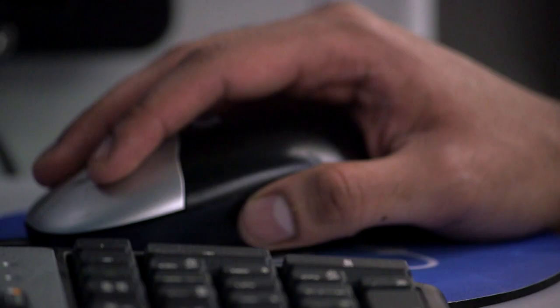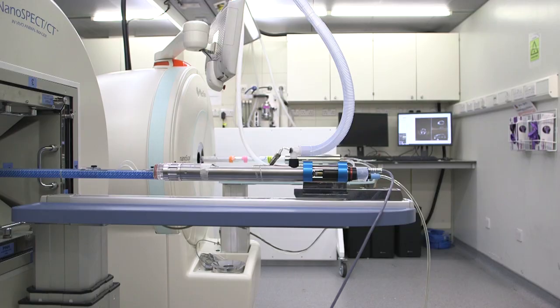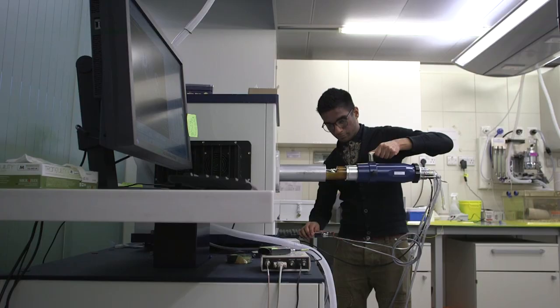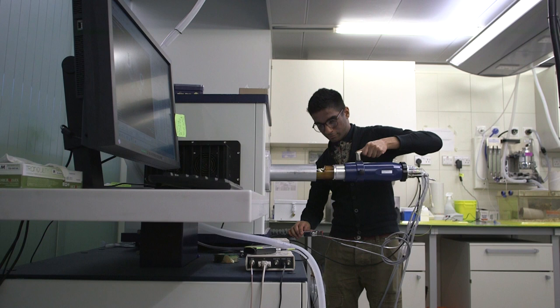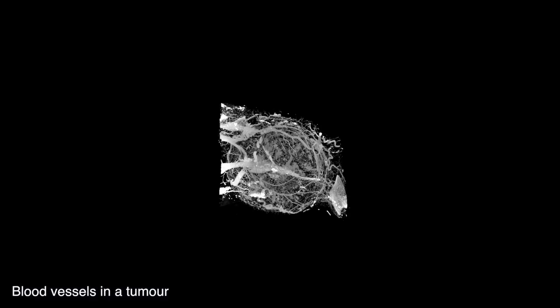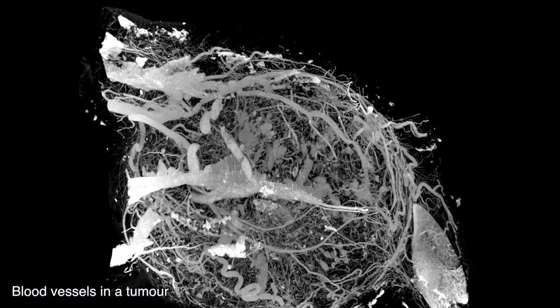Sugar in the form of glucose is found in various foods and it's a primary source of energy for biological tissue. We are now using glucose in a cutting edge MRI technique to detect cancer. This technique selectively images areas of the body based on glucose uptake.